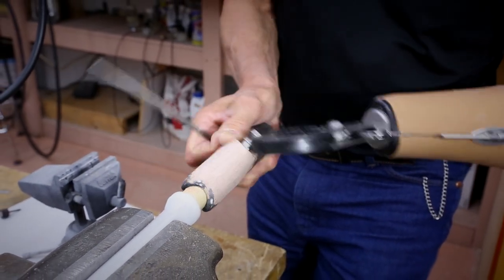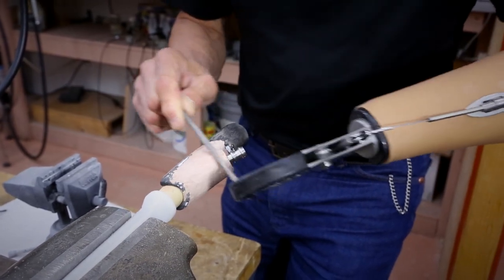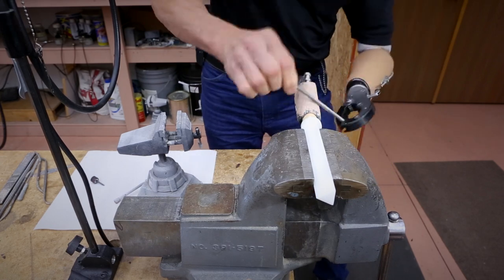But this is just illustrating how a voluntary closing prehensor allows you to handle and manipulate tools so that I can do this kind of close-up and careful shaping work with a prosthesis.